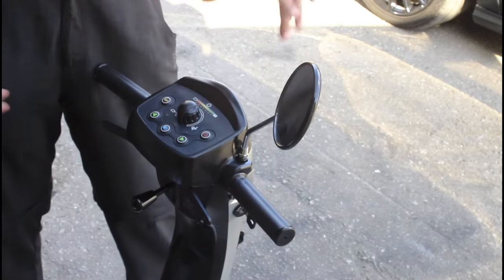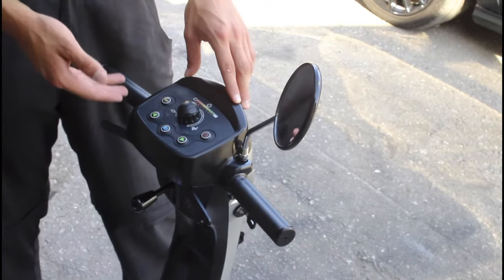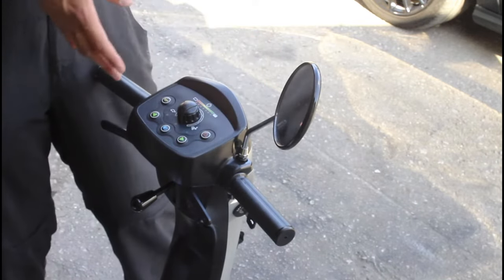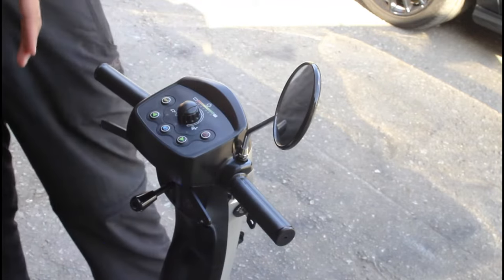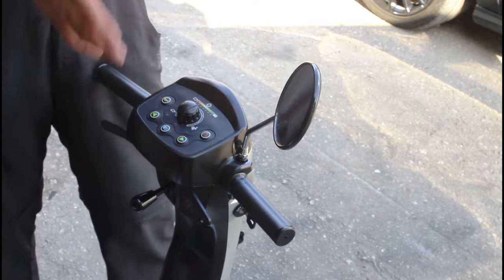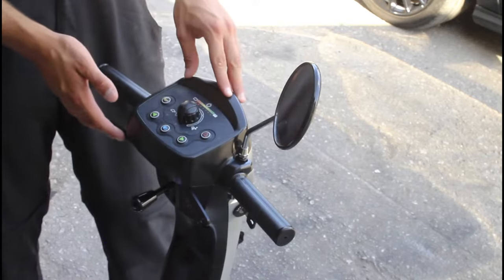If you're on it and you lose one or two bars going up a very steep hill, that's normal — it'll go back up. The scooter tells you how long the batteries have left by reading how many volts are in them. Batteries are 12 volts each, so you should get a reading of 24 volts total, but a good set will be well over that — around 26 volts — meaning plenty of life left.